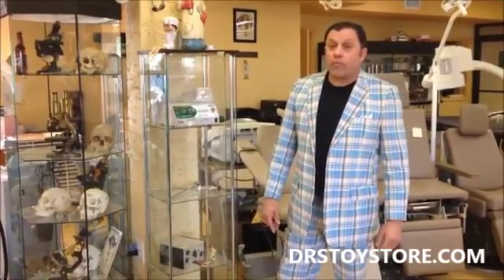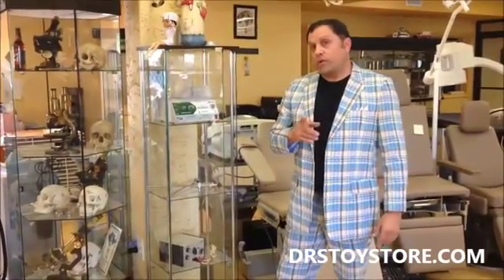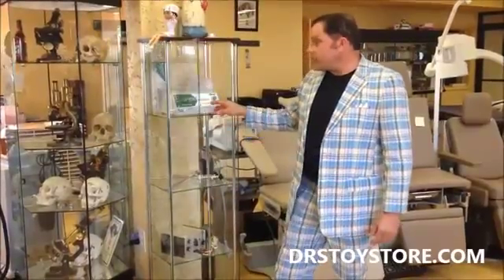Looking for an Elman Sergitron or a 4.0? Well, they're no longer made, but at the Doctor's Toy Store, we've got some excess Elman AccuSets.